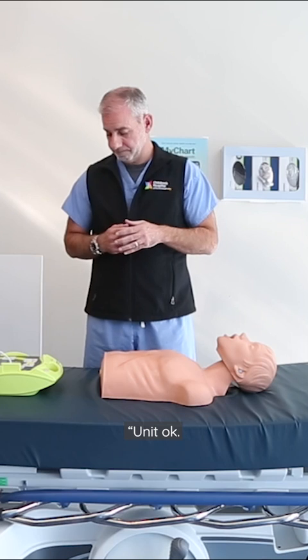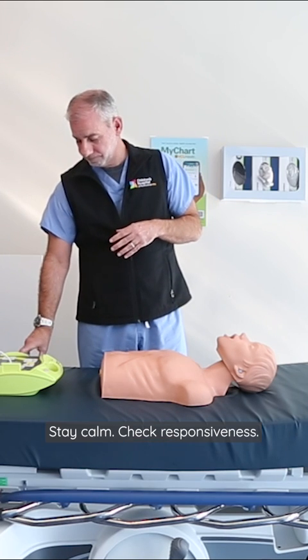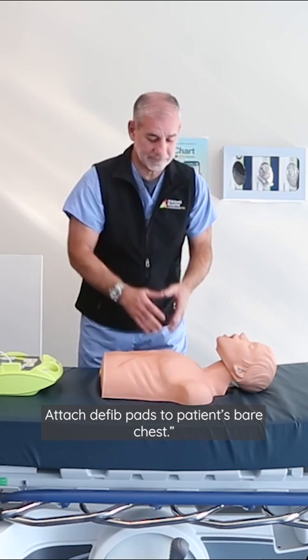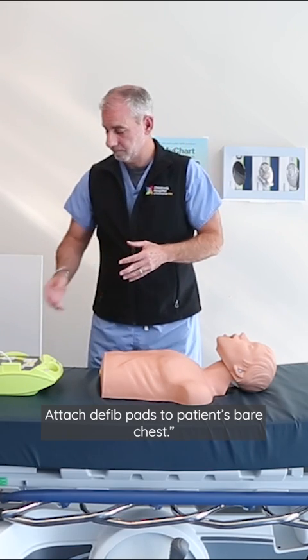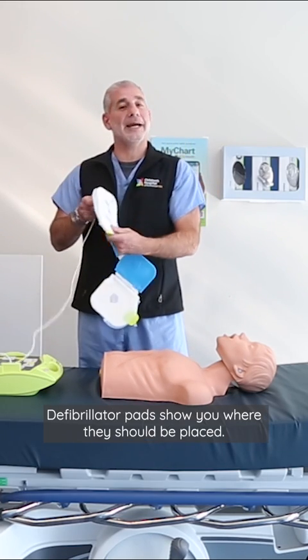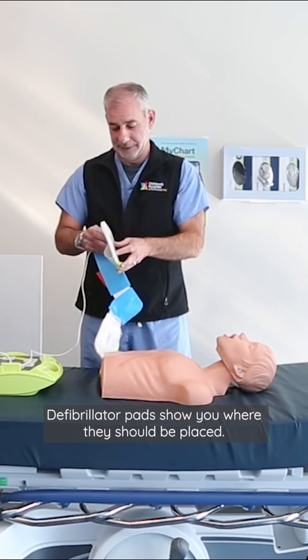The device powers on — Unit OK. It prompts you: Stay calm. Check responsiveness. Call for help. Attach defibrillator pads to the patient's chest. The defibrillator pads show you where they should be placed.